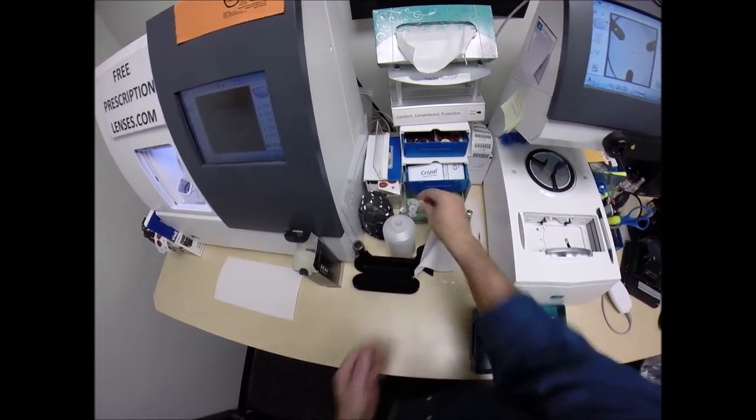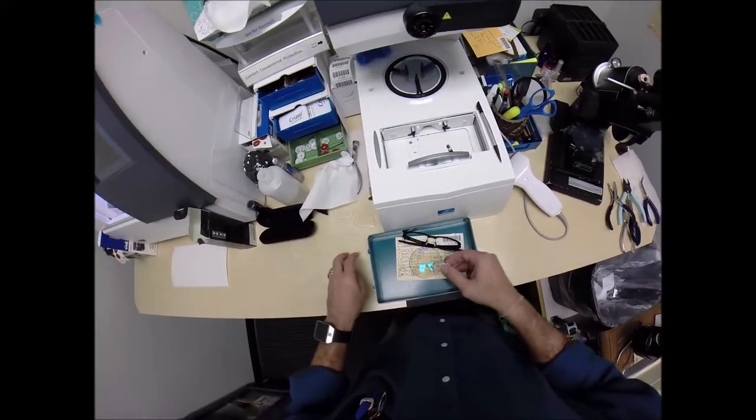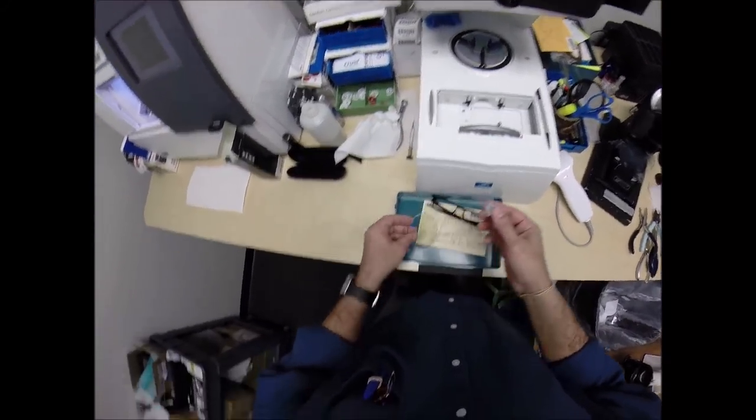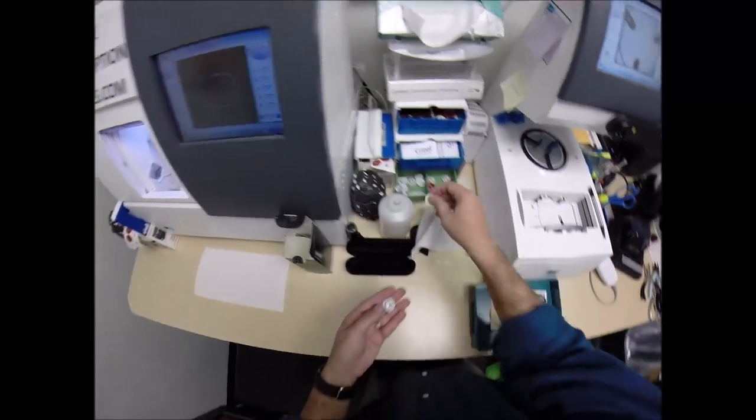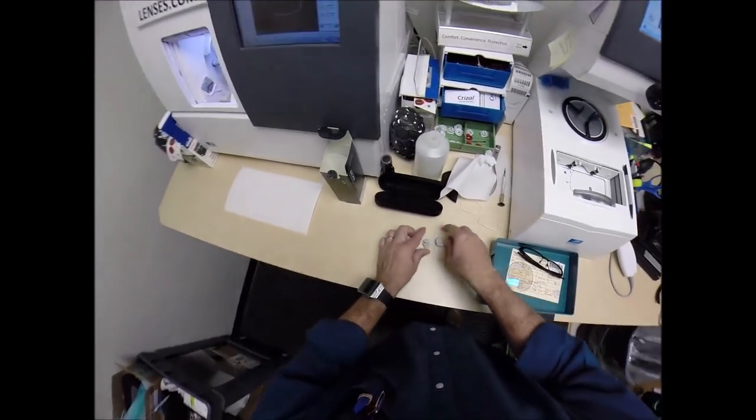This is a block, or as I like to call them, Jenny from the block. I need to attach this to your lens while it is cutting. Did I just drop that? All right, let's get another one. You don't pay me enough to bend over this time of day.